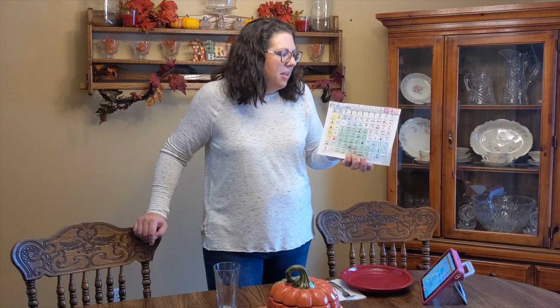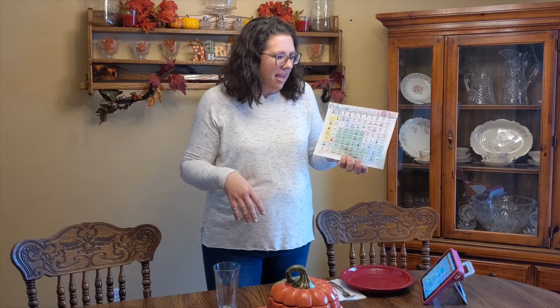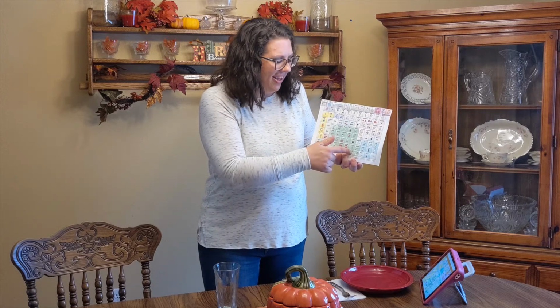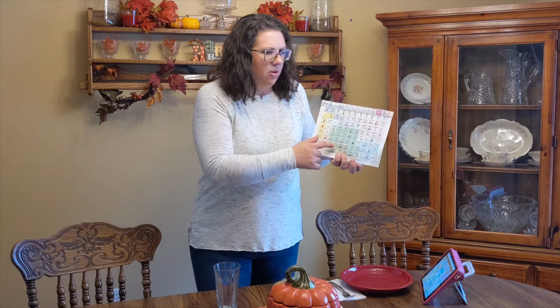Also during mealtime, it doesn't always have to be about the food. We could just have a conversation about our day. It's really important for us as communication partners to provide that aided language input on that, and to teach them how to have a conversation during mealtime and to engage them in that. So we could talk about, what did you do today? And we could even give them options using our core board. Did you watch a movie? Did you read a good book? Did you play something fun?